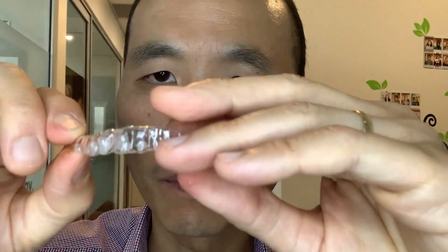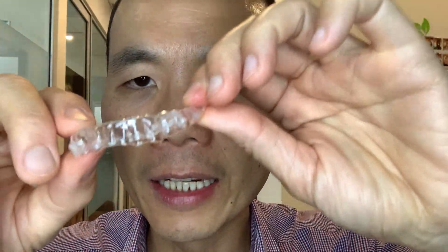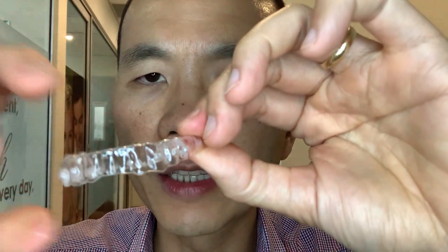As you lift on the back part, then lift the other side at the back part again — one on the outside, one on the inside — and then lift the front and take it out.